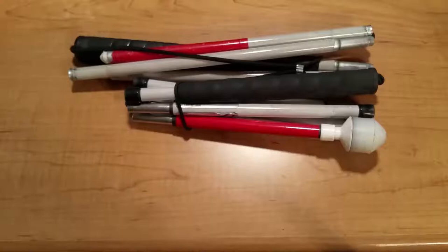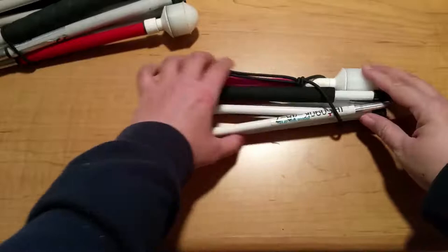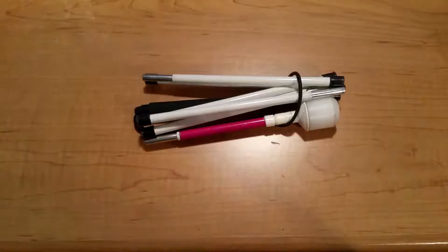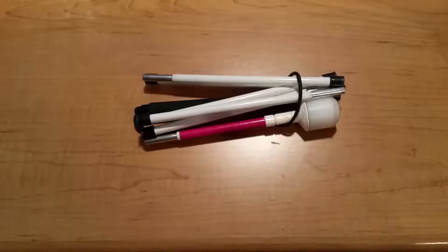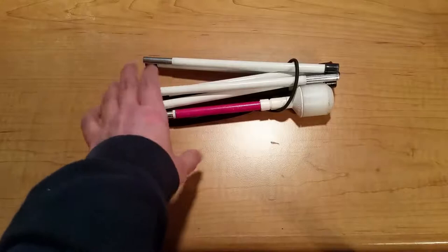There was still room for improvement, and AmbuTech must have heard us because about a year or so ago they introduced the slimline series of canes. Not only do they come in seven sections, making them ultra portable, they are also completely customizable. You can customize everything from the color, to the type of tip, to the number of sections. I jumped on this because I was about to go on a trip to a lot of concerts where I go to general admission shows — having your cane out is not practical. Once I get my spot, I fold my cane, throw it in my bag, and that's where it stays for the rest of the night.